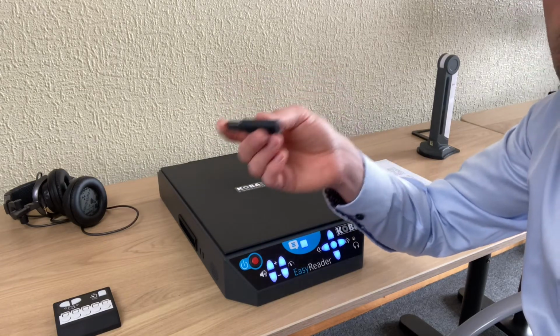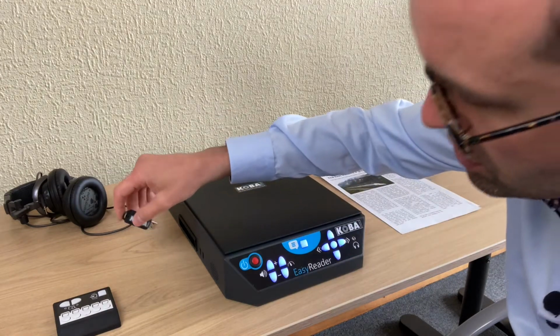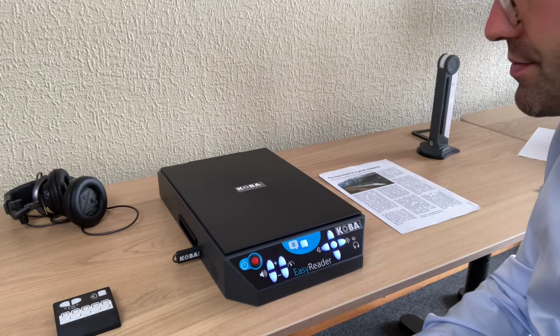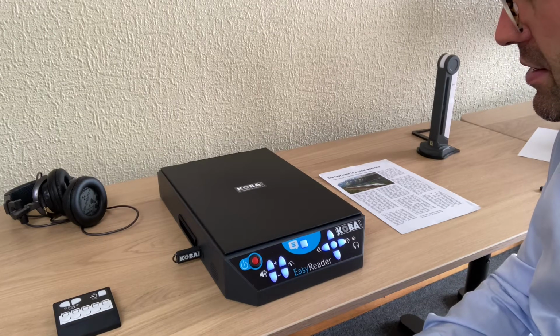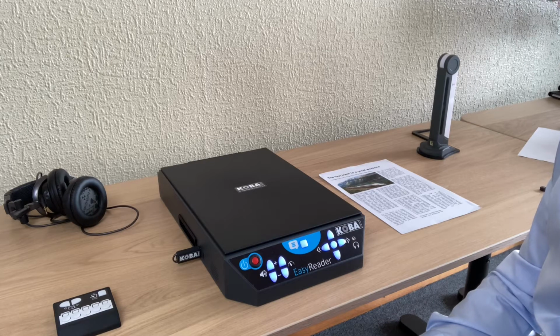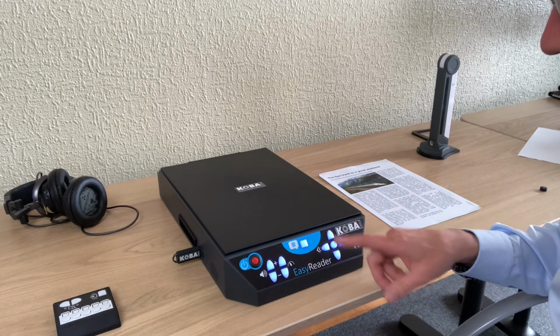If you would like to use a second function of the USB, so reading PDF files, just insert the USB stick into the USB port of the machine. We have to wait for the message again. The USB stick is connected. Press the scan button to save all 4 pages on this USB stick. Press another button to open PDF files. So I'll press another button.